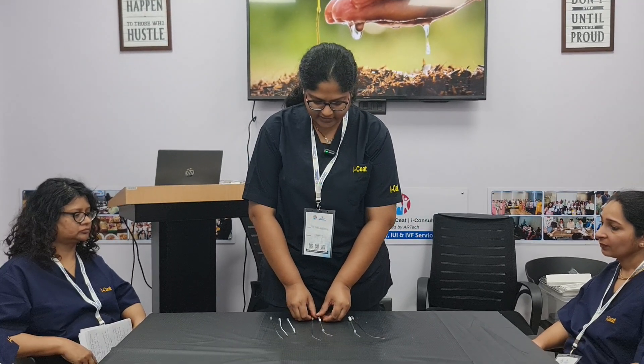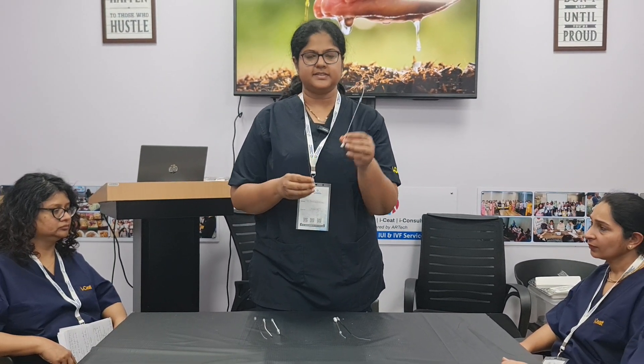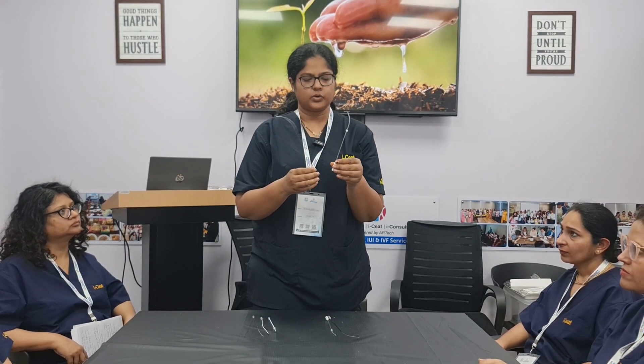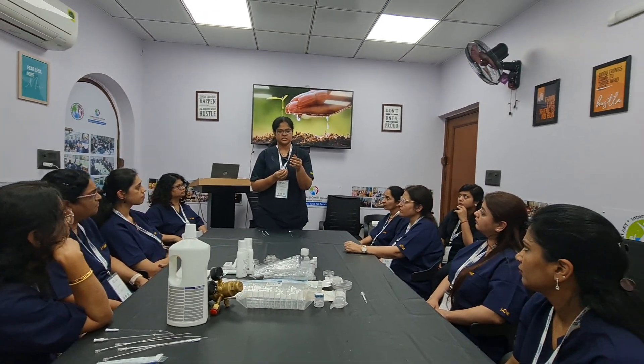There are three types of catheters. The first is a two-piece catheter. This is the outer catheter and this is the inner catheter. The outer catheter is 6.8 French and approximately 17 centimetres in length. The inner catheter is thinner at 2.4 French and approximately 20 to 24 centimetres in length. The outer catheter has a bulbous tip which is visible on USG.